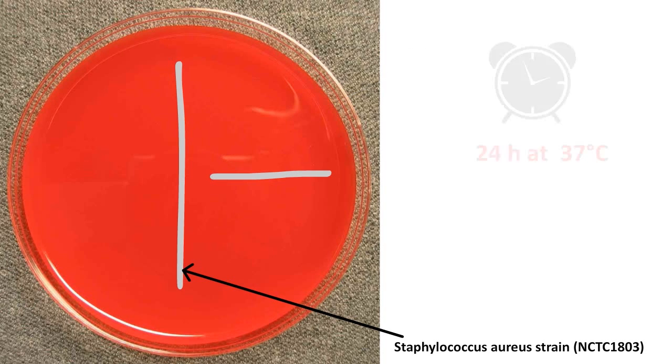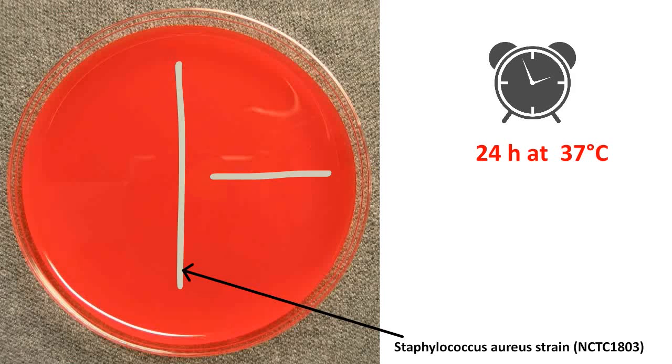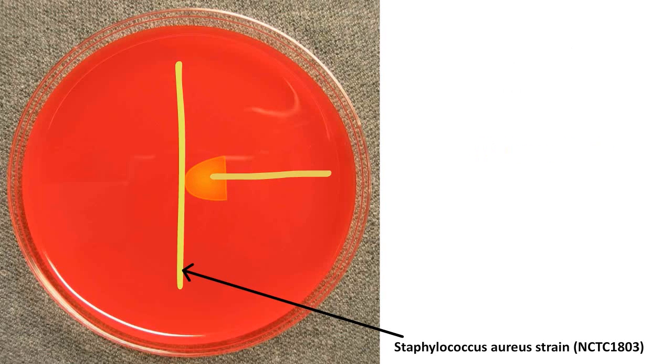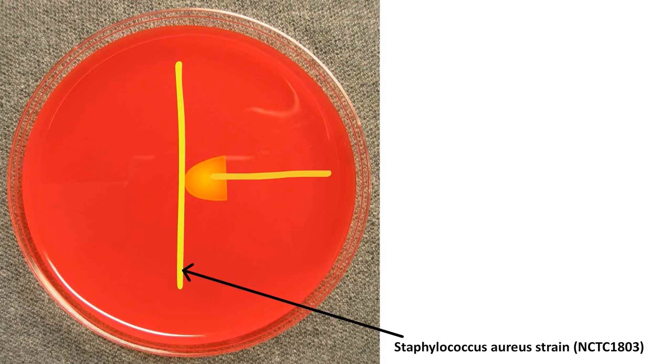Incubate the inoculated plates for 24 hours at 37 degrees Celsius in air, or in air with 10% carbon dioxide.